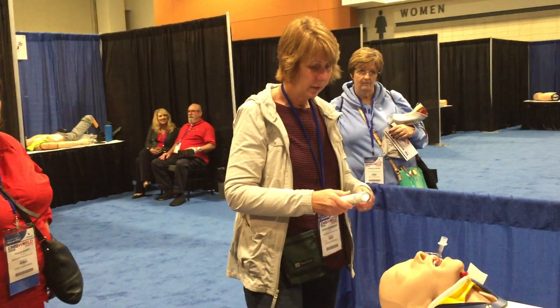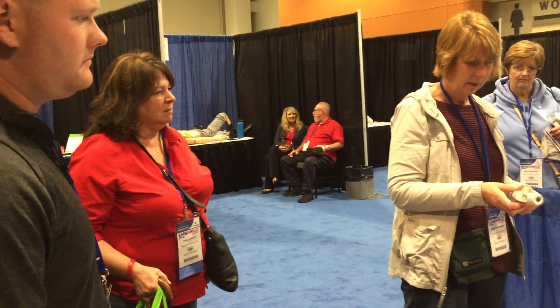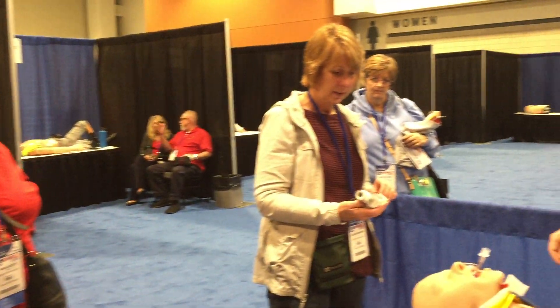And this is all disposable — use it one time and throw it away. Comes packaged.